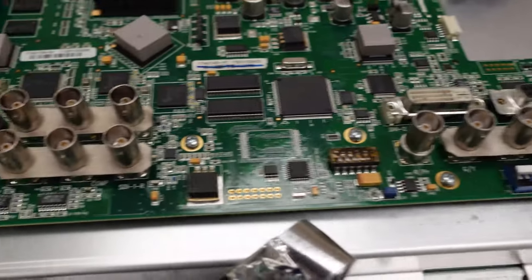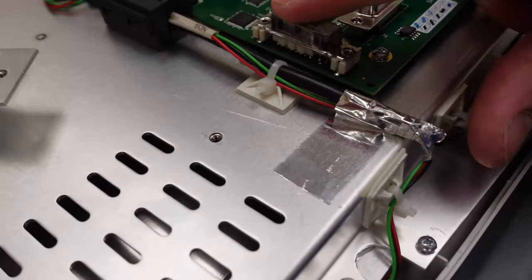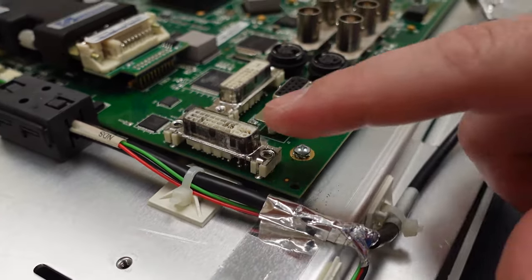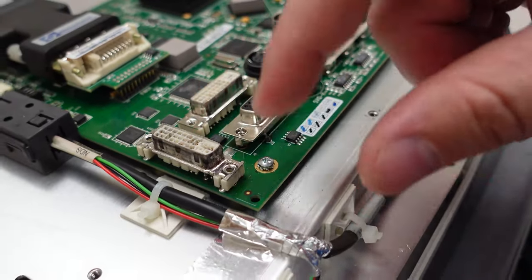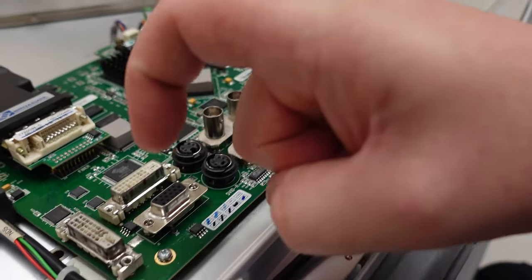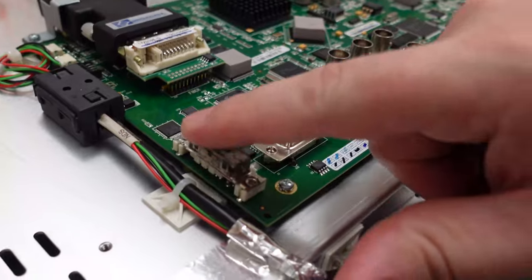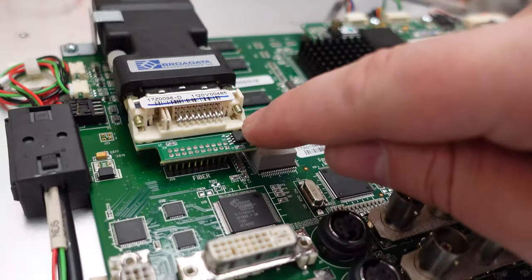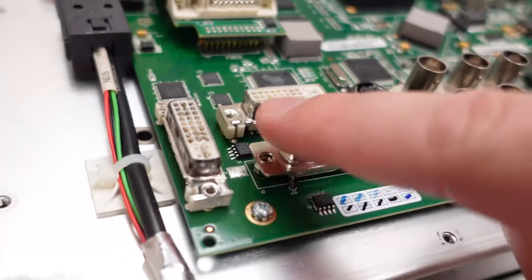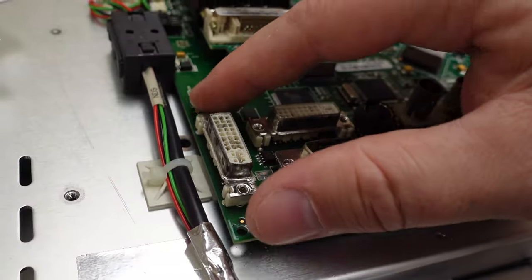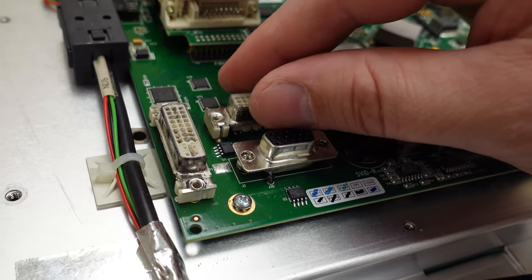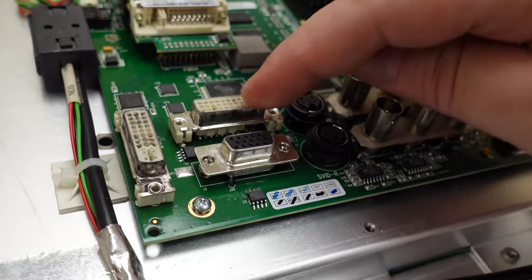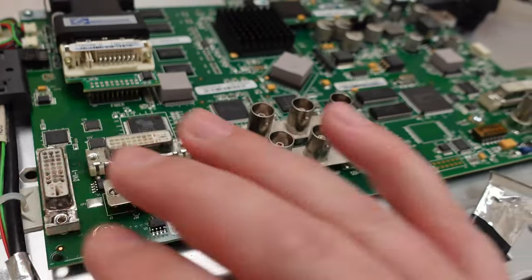One of the cool things about these ones is, see these DVI ports right here? You can actually desolder these and solder in replacements. So if they get jacked up like this one and this one, since it's just a straight port, the ones that are bent at a 90 degree are a wee bit more difficult. But the ones that are straight on, these ones are super simple. Just use a hot air gun, heat it up, they pull straight out. Very simple. Don't use any force because you'll pull some pins that might not be molten. Those ones are very easy to fix. This is a fixable board.